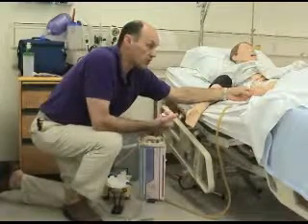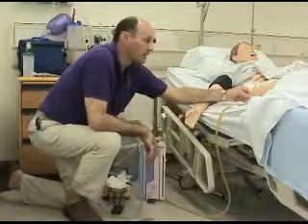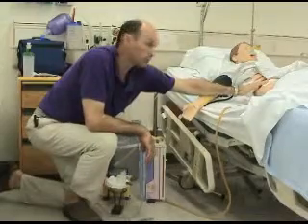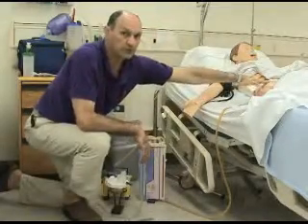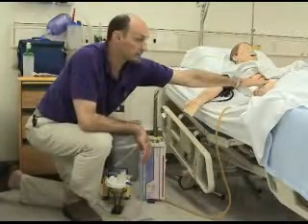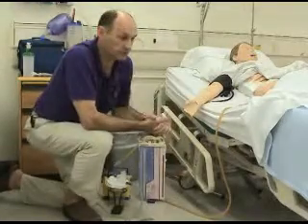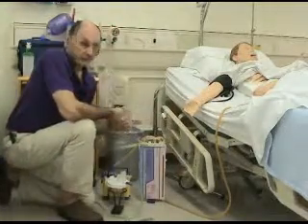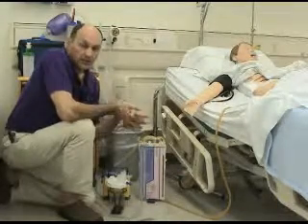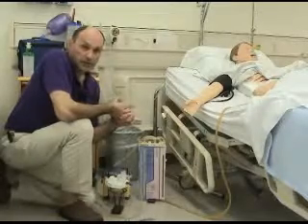The student should also assess the quantity and color of the drainage in the bulb, in addition to the dressing that's covering the wound. Now, you could either put some dark red or brown over the dressing to identify some sort of drainage if you choose. But these are a couple techniques that you can use in your scenarios to increase the reality that the student will experience, and it'll give you a chance to assess their learning in a better way.